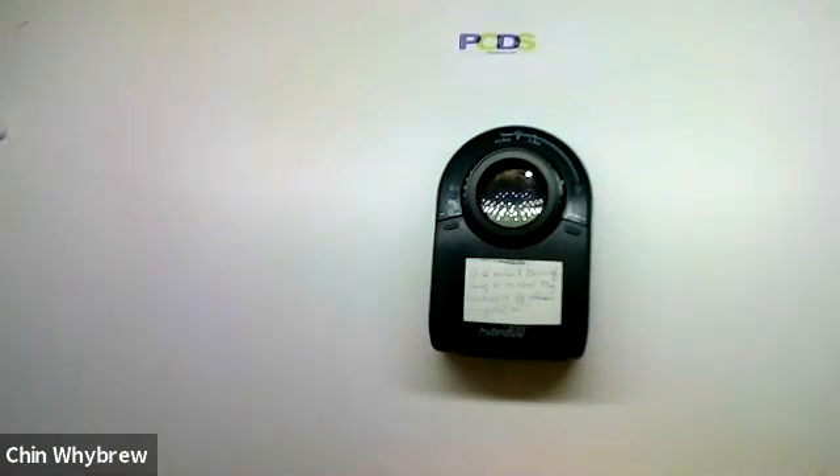So this is just showing the equipment. To learn more and how to use it, please come along to a Dermoscopy for Absolute Beginners course or to one of our other Dermoscopy or General Dermatology courses. You can access them all at PCDS.org.uk. So that was the Dermlight 2 hybrid.